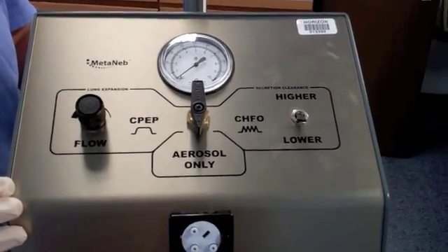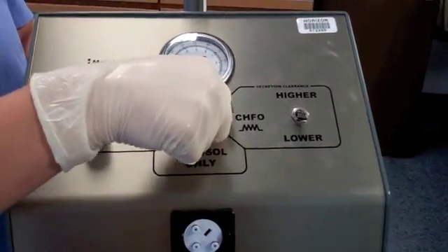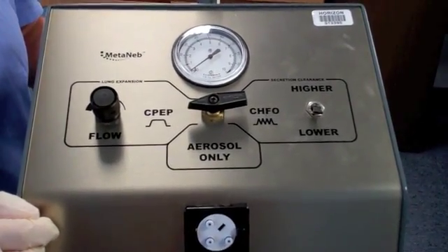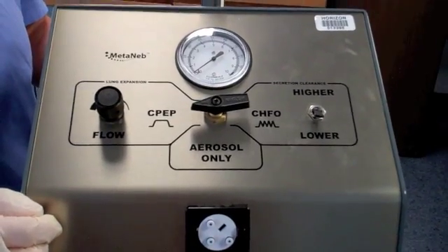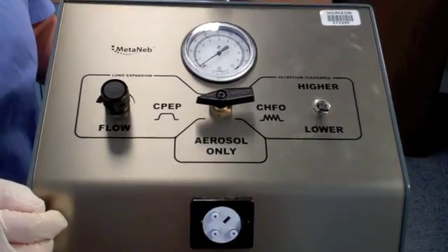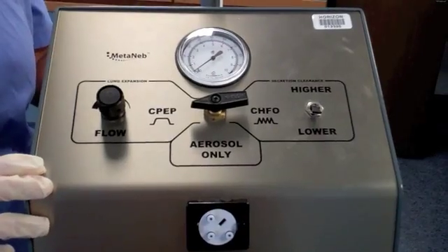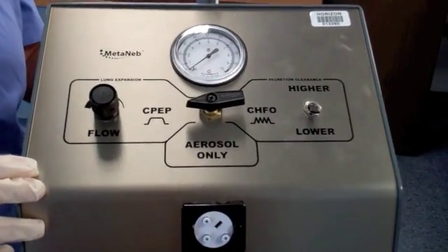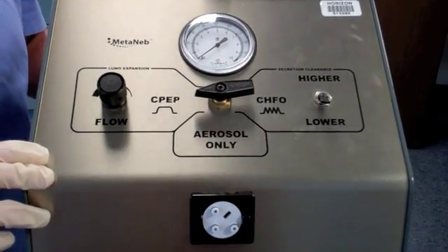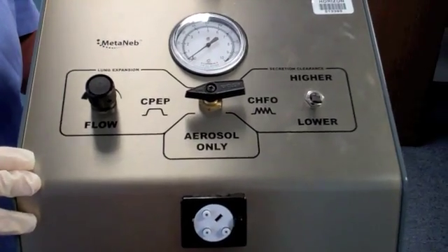The second mode, with the arrow pointing to the left, is the CPEP mode, which stands for continuous positive expiratory pressure. The CPEP mode serves three purposes: it helps to aid in the mobilization of secretions, reduce air trapping, and prevent atelectasis or lung collapse.